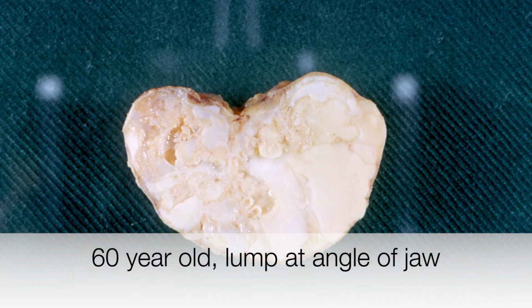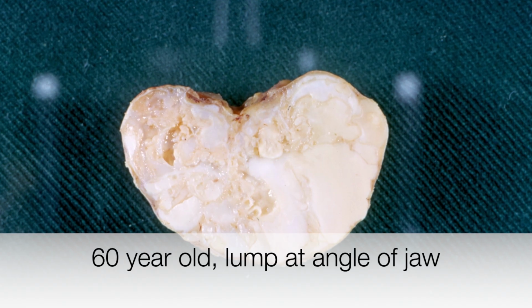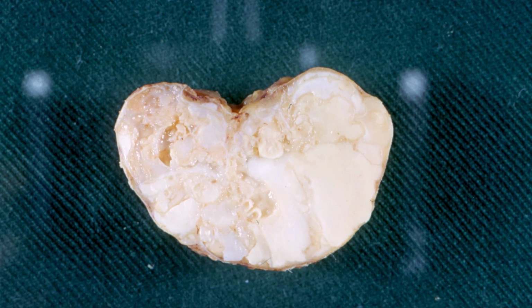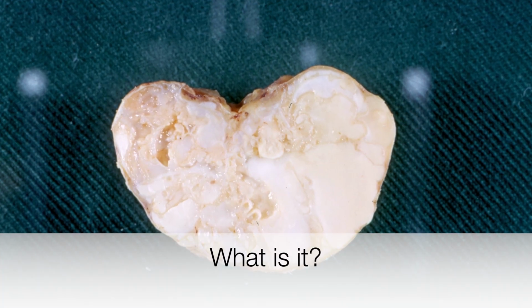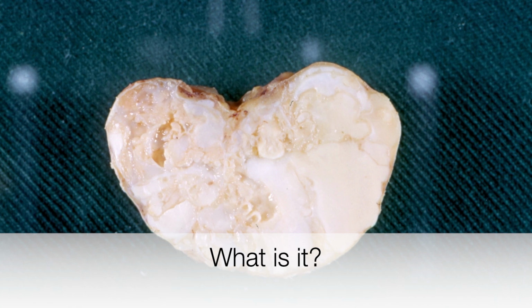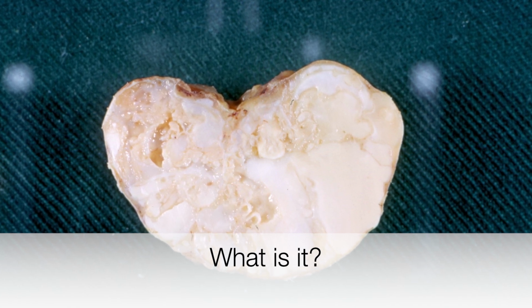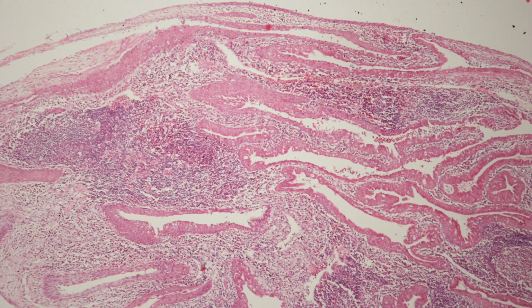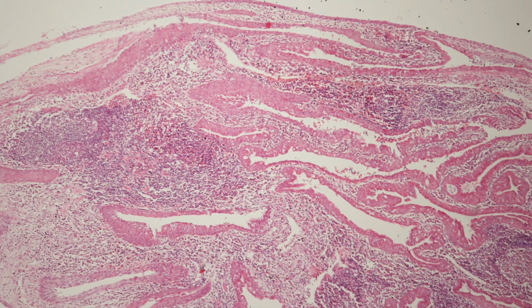Question 1. This is a lump that was at the angle of the jaw of a 60-year-old man. What is it? This is the gross appearance of the lesion that has been bisected. And this is the histology.